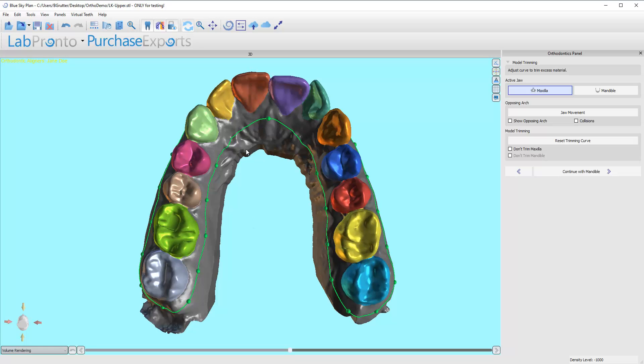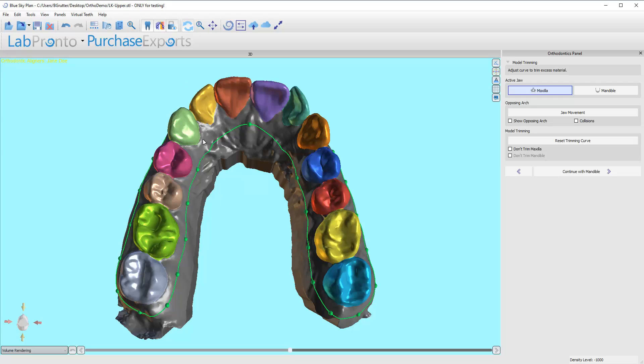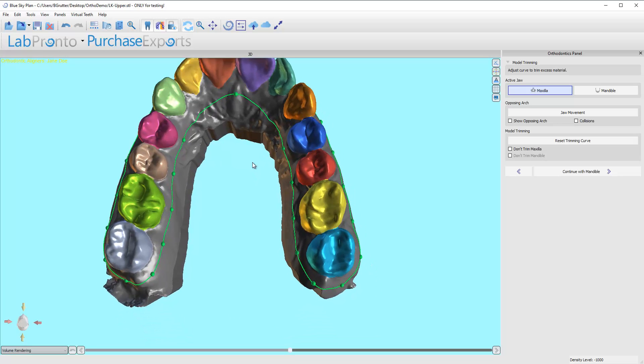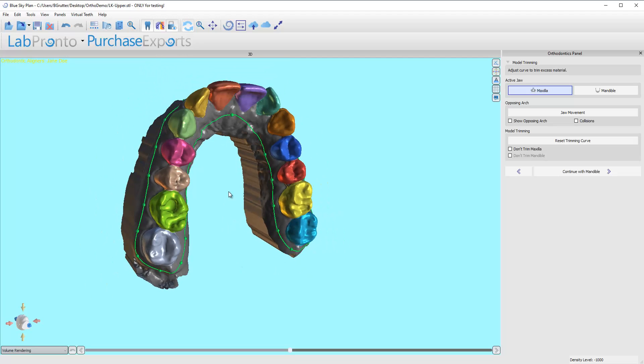That's the most important change. The rest of it you don't really have to do much with. I'm hoping that in future versions we'll have it automated where it only adds a node at the first premolars at the midline, and then you can always go back and add more nodes if you want. If that's all we have, it creates a nice triangle shape, which is good for printing. You can move the nodes around a little bit on the heels, but honestly it's really not going to be that important.